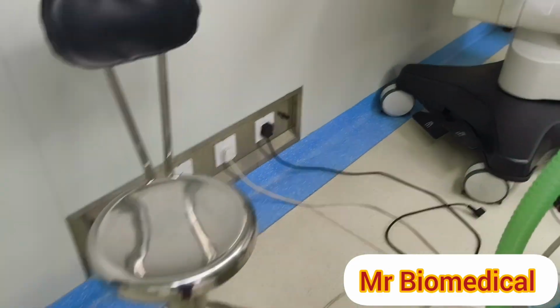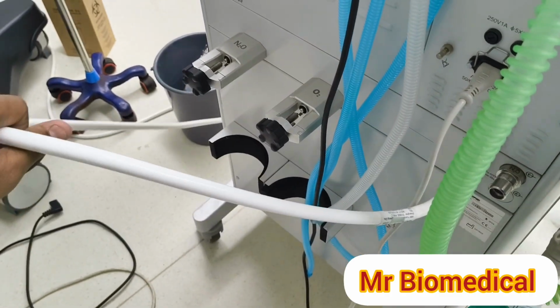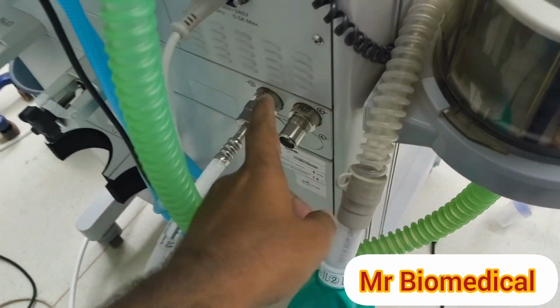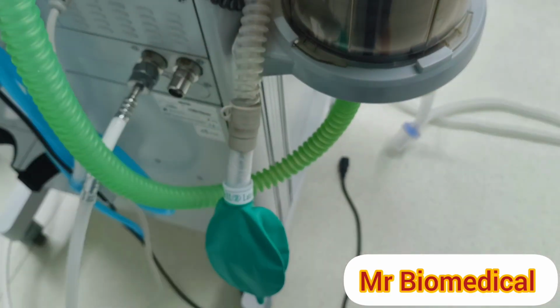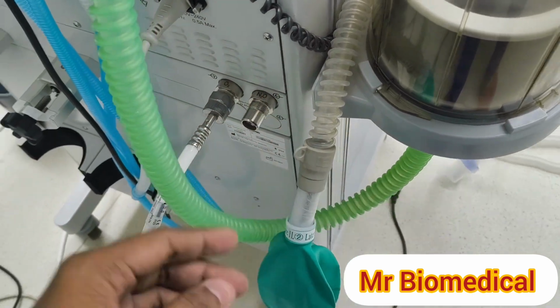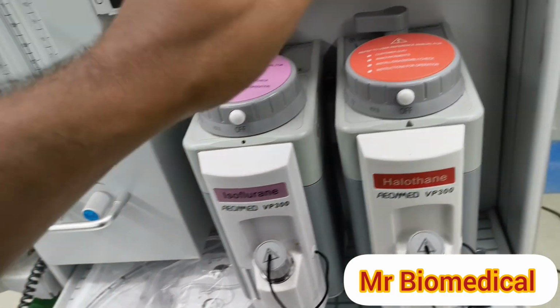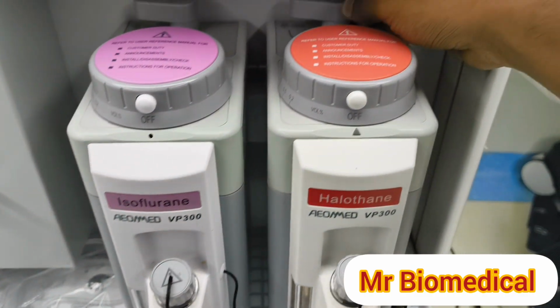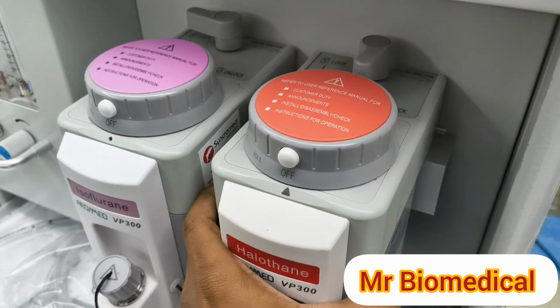So how anesthesia machines usually work is, we have to put the oxygen connection via pipeline, or you can put it in the cylinder itself. Here in Uganda, in our hospital, they're not using nitrous oxide, but if you have nitrous oxide, you will connect it here and it will work. This one is a vaporizer, used for the anesthetic drug to be inhaled by the patient. This is how to unlock it and take it out. Just lift, and you can take it out.